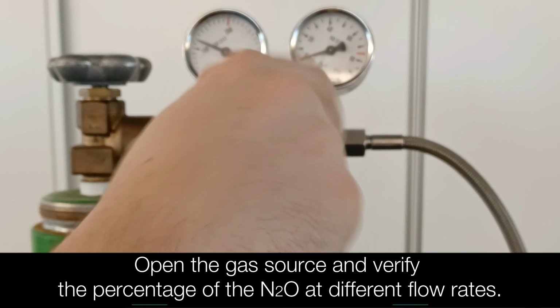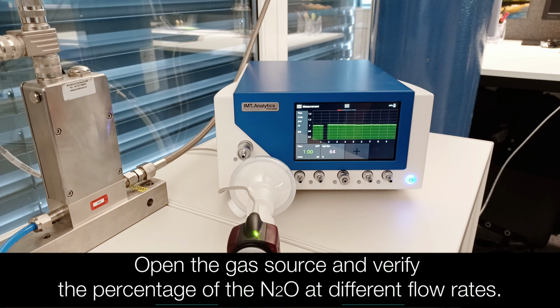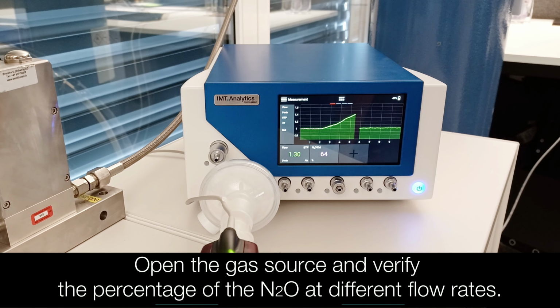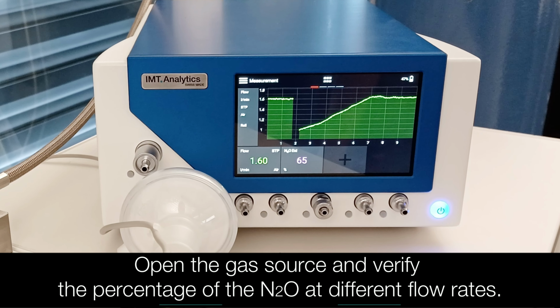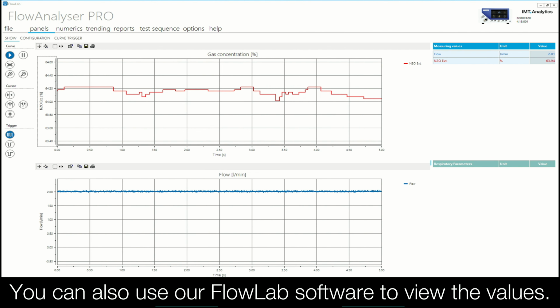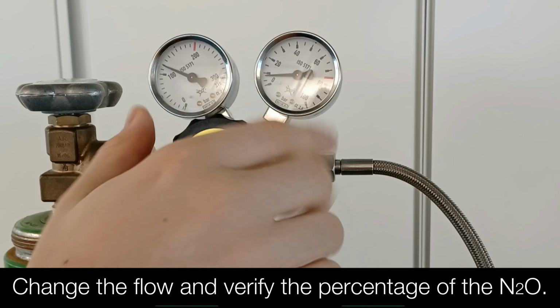Open the gas source and verify the percentage of nitrous oxide at different flow rates. You can also use our Flow Lab software to view the values. Change the flow and verify the percentage of the nitrous oxide.